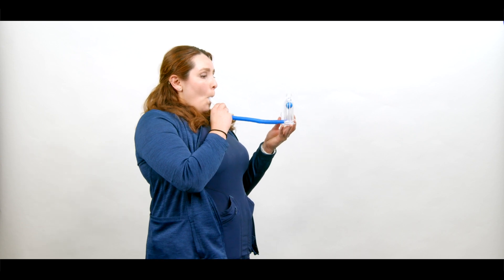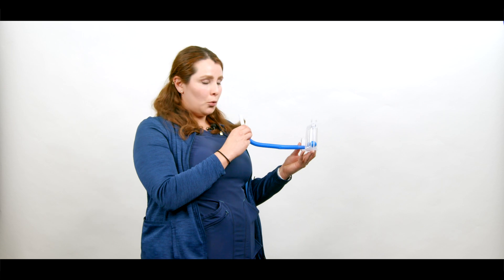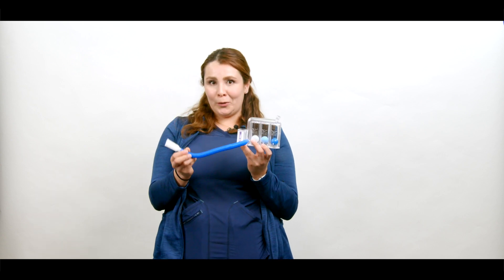We're going to ask you to do this around 10 to 15 times every hour. You exhale slowly and then repeat. It's quite simple — it's going to get a little bit easier after you wake up from the anesthesia, and if you do it constantly it will definitely start getting easier. Please use your incentive spirometer exercises because it's totally worth it.